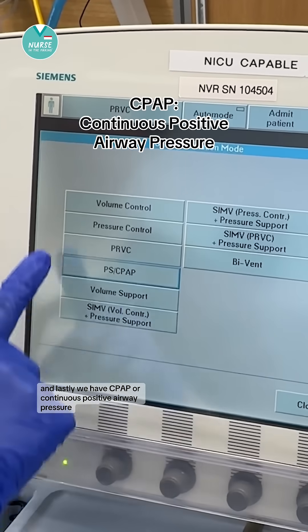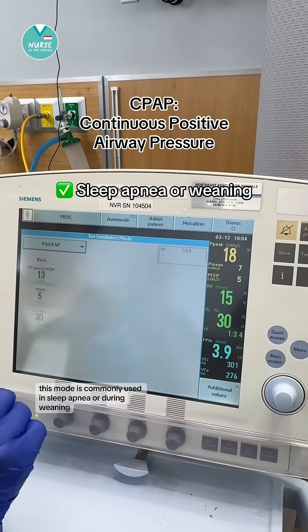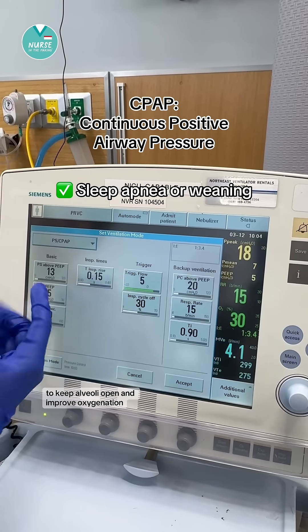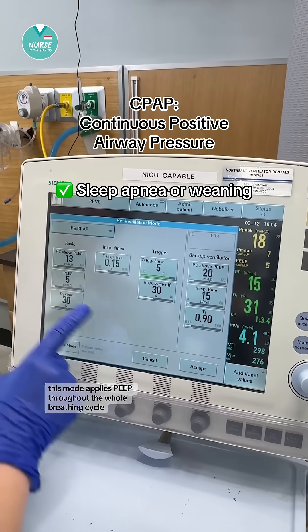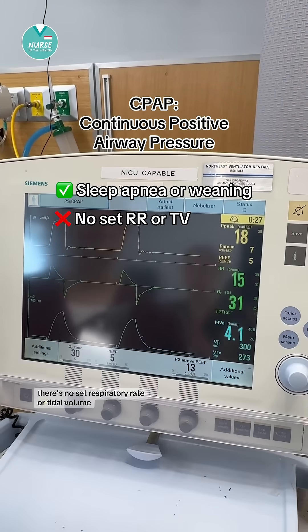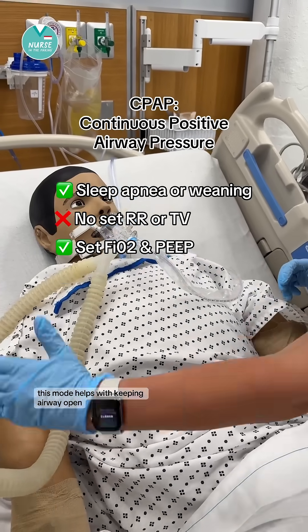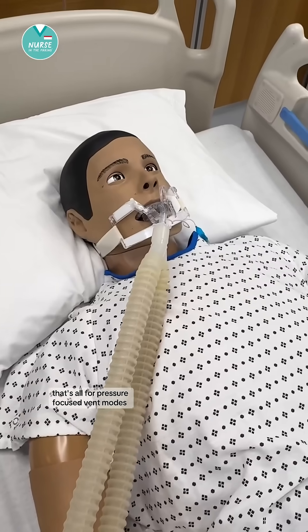Lastly, we have CPAP, or Continuous Positive Airway Pressure. This mode is commonly used in sleep apnea or during weaning to keep alveoli open and improve oxygenation. It applies PEEP throughout the whole breathing cycle. There's no set respiratory rate or tidal volume — we only control the oxygen amount and PEEP. This mode helps with keeping alveoli open while the patient does the work of breathing. That's all for pressure-focused vent modes.